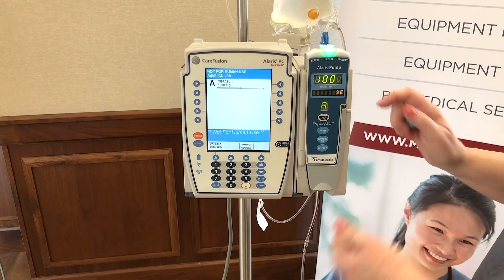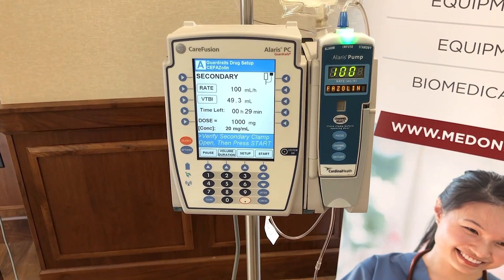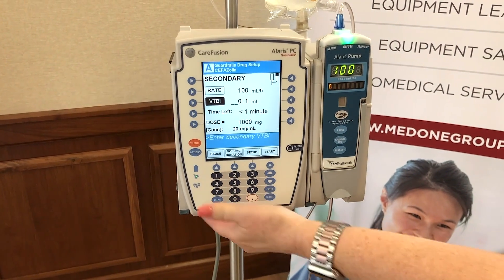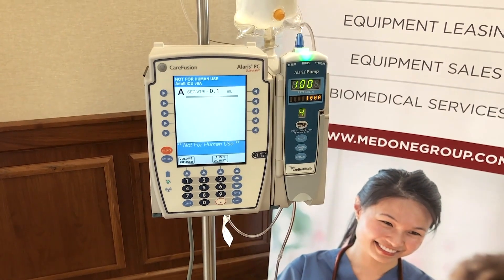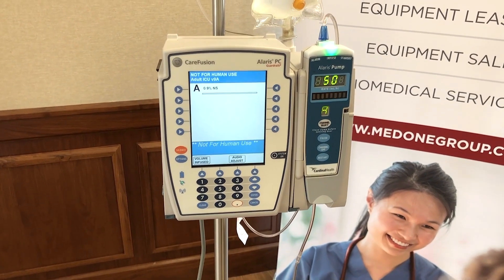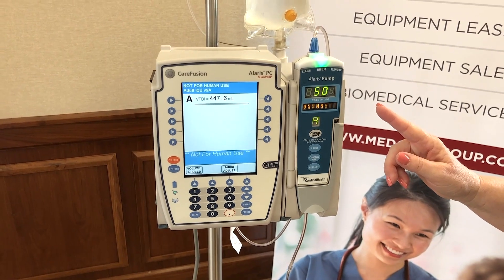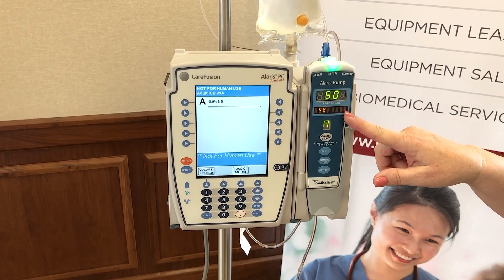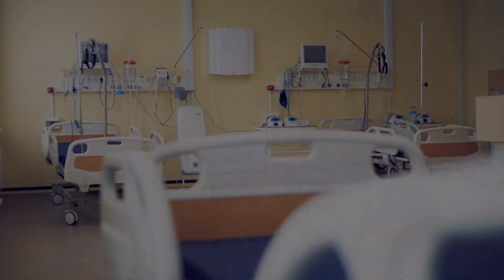We're going to press channel select and change our volume to be infused to 0.1, just so we can simulate this happening really quickly, and press start. It automatically flips back over with a series of six beeps back to the primary rate that we originally programmed for our normal saline. So that's a secondary infusion. Thank you.